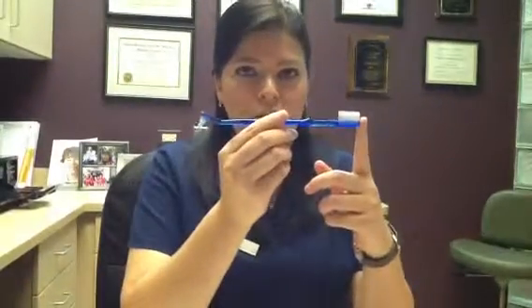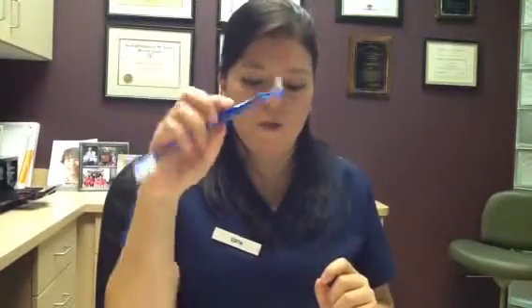I'm going to show you how to brush with your braces. Here at Pamela Johnson's office, you'll get a toothbrush that looks like this, and you also have a little proxy brush at the end of your toothbrush, which will make it a lot easier for you to brush. All you have to do is make sure you take your toothbrush and make sure the bristles are going in between the brackets from the top. You want to come from the bottom and then brush directly on top of the brackets. Make sure you do this for both the upper and lower arches, and you can always use your little proxy brush to get in between and clean by the brackets.